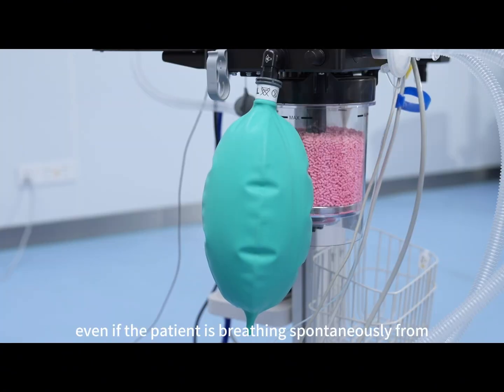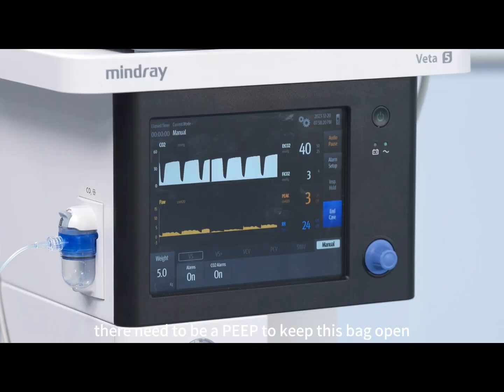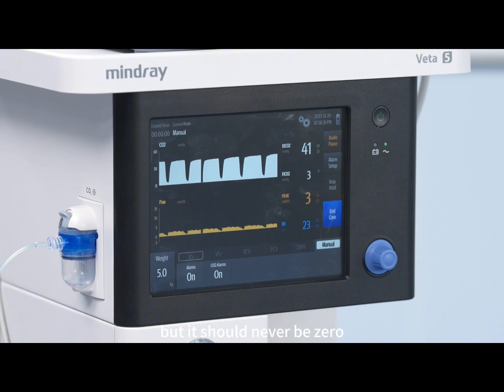Even if the patient is breathing spontaneously from a reservoir bag, like this one here, there needs to be a PEEP to keep this bag open, nice and inflated, so that the patient can freely breathe from it. Often this pressure is rather small, about half a centimeter of water is enough, but it should never be 0, otherwise the bag would collapse and the patient couldn't take a breath.